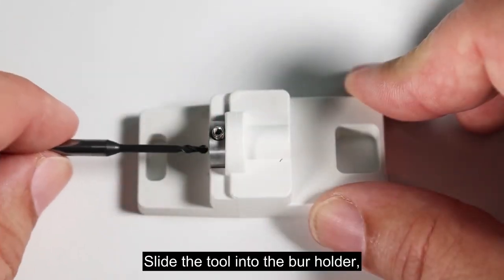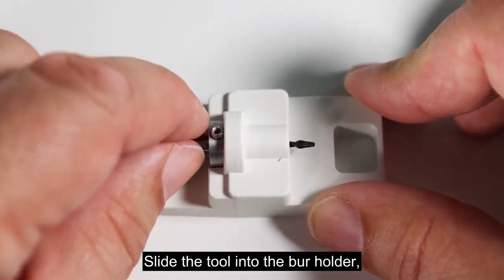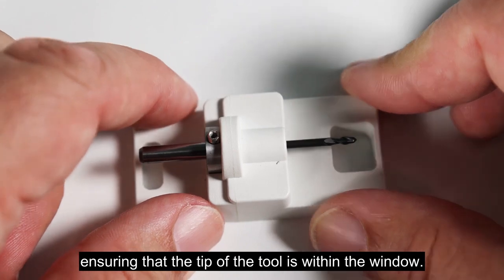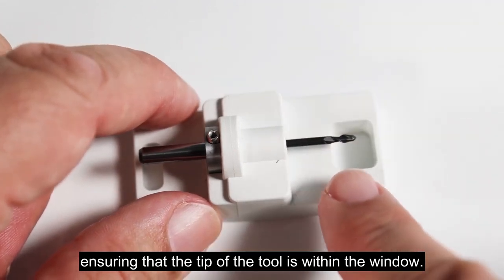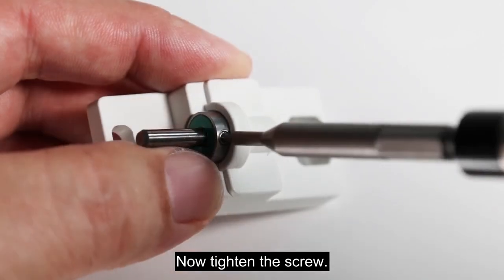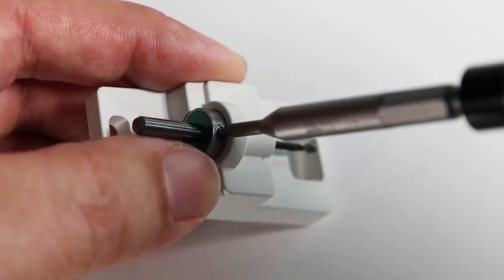Slide the tool into the burr holder, ensuring that the tip of the tool is within the window. Now tighten the screw.